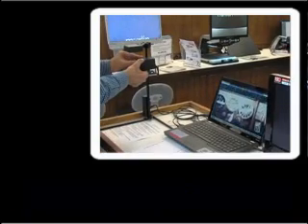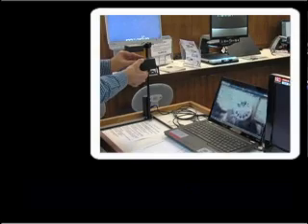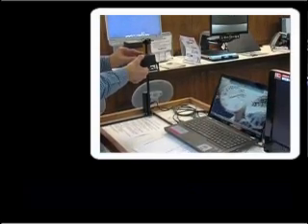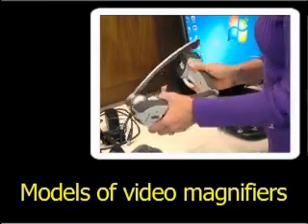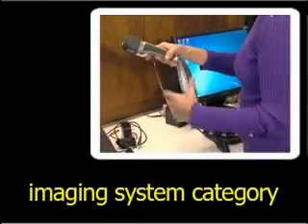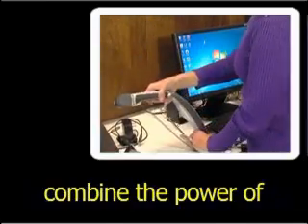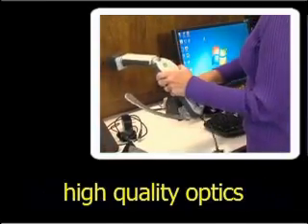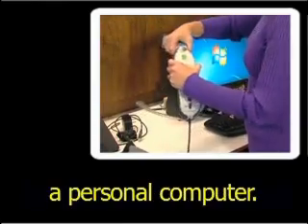The second camera, also a small box, is adjusted on the narrow pole connecting the cameras to the laptop. Models of video magnifiers that fall into the digital imaging system category combine the power of high-quality optics with the power of a personal computer.